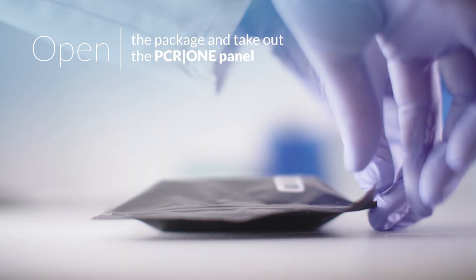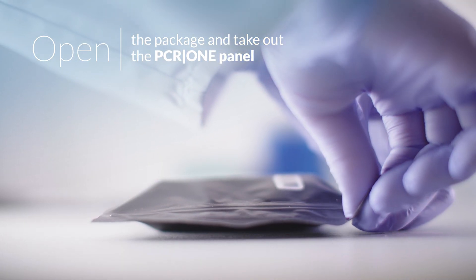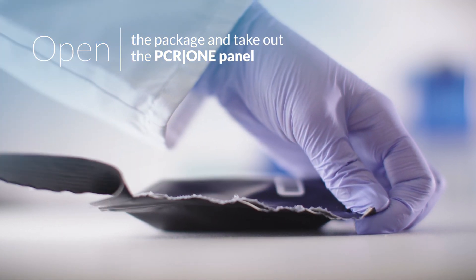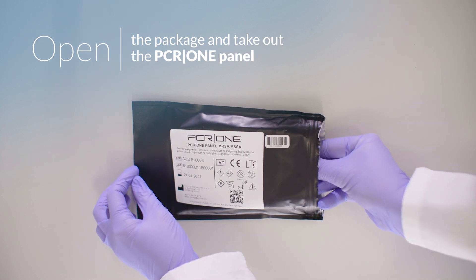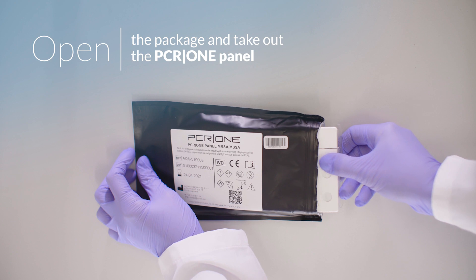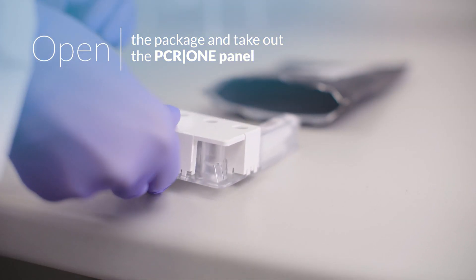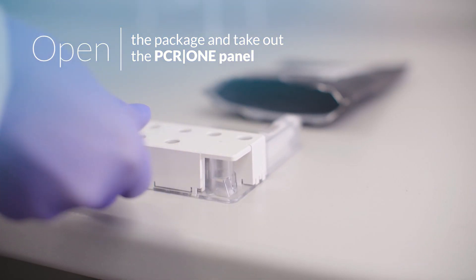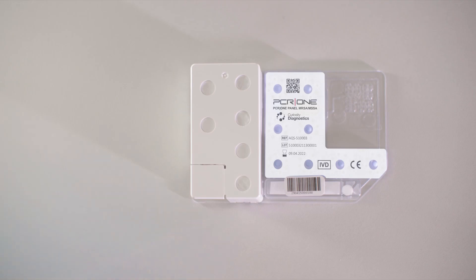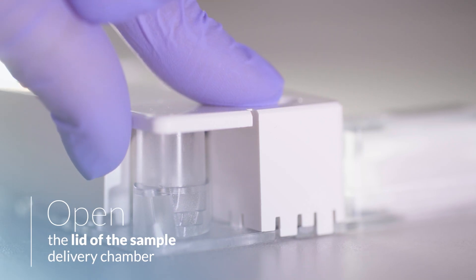Open the package and take out the PCR1 MRSA MSSA panel. After unpacking, place the sample in the panel. When opening the package using sharp objects such as scissors, take special care not to puncture the panel with sharp edges. Do not touch the foil on the raised part of the panel where the PCR wells are located. When working with the cartridge, make sure that the waste chamber vent is unobstructed. The PCR1 MRSA MSSA panel should be kept on a firm, flat surface at all times.